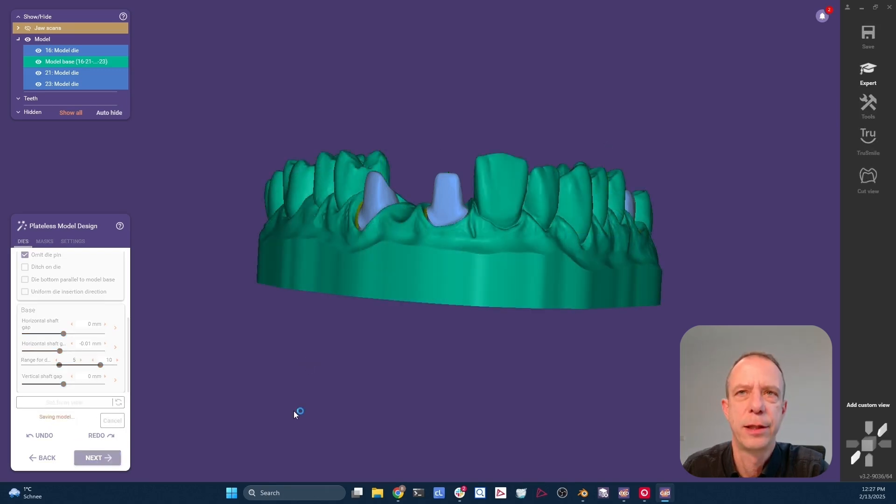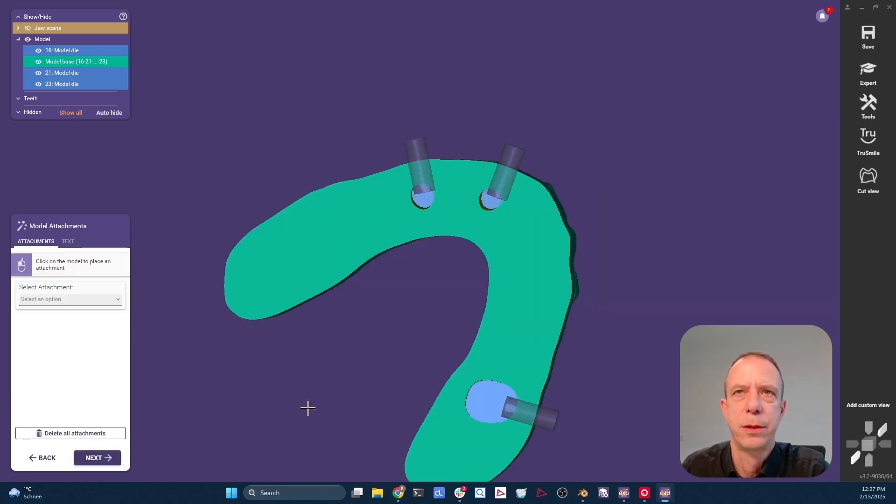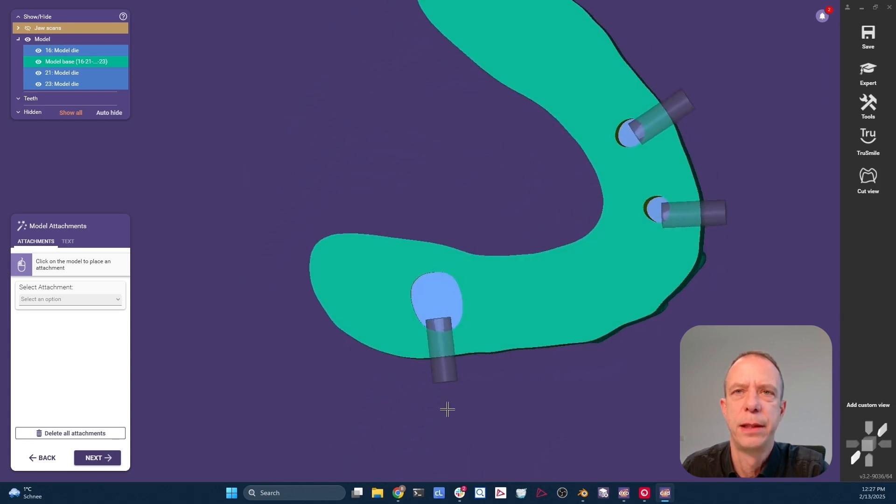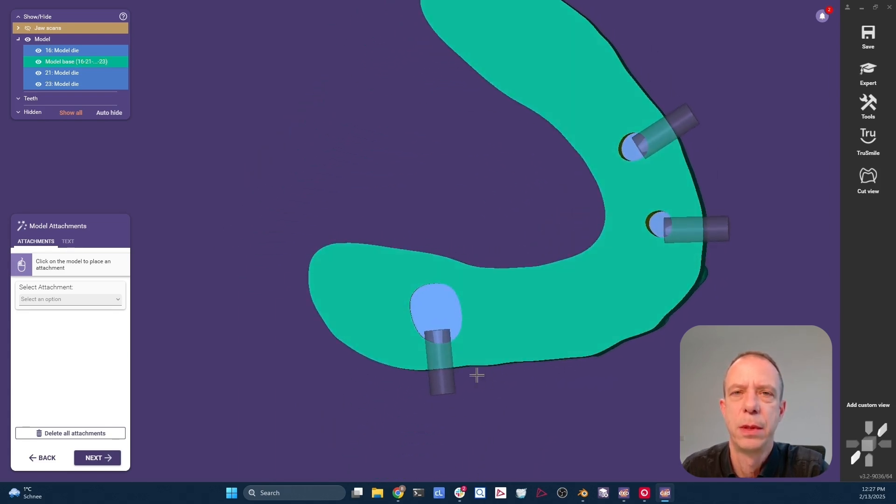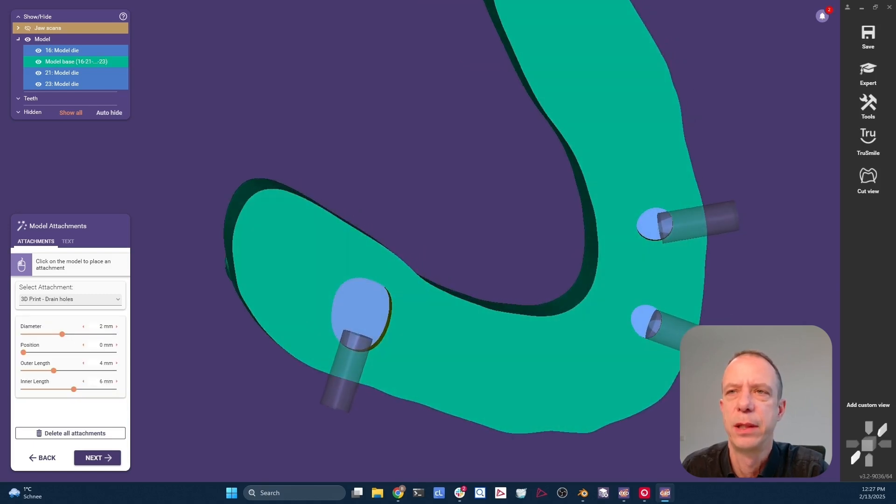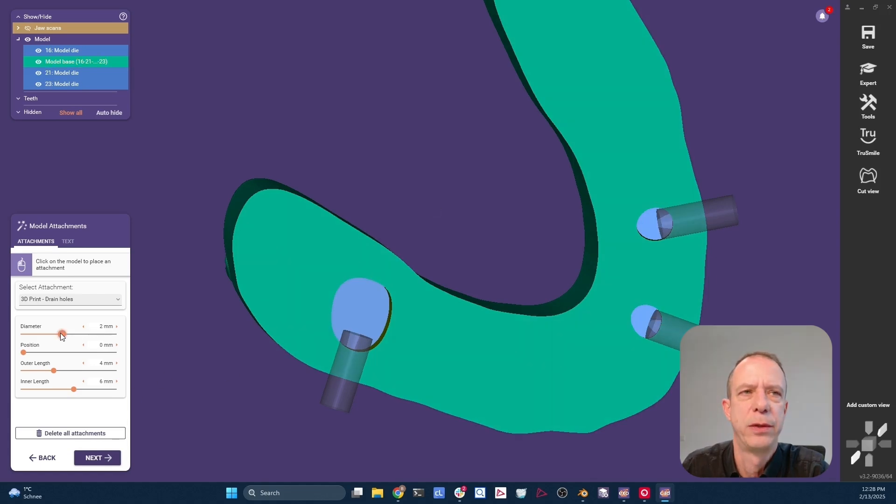In the next section, we can add a label and we can add drain holes. You see that I get automatically these little drain holes at each die position. They need to be a little bit adjusted. So let's align them a little bit better so they're actually pointing to the center of this little hole here. And we see they are quite large for these smaller dies. Let me reduce the diameter a little bit.